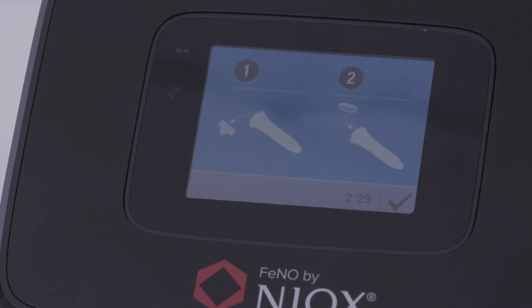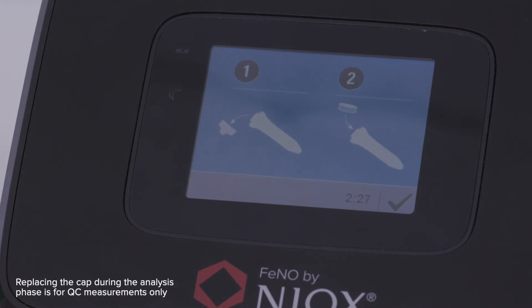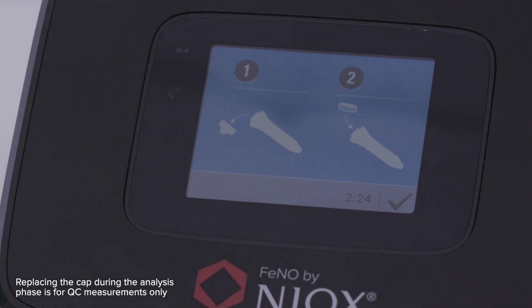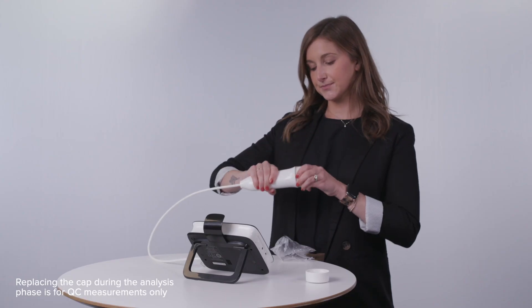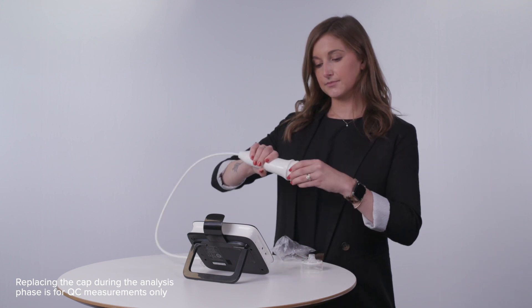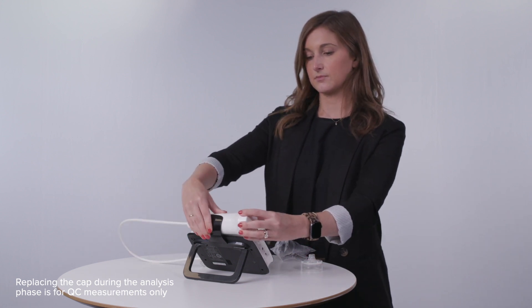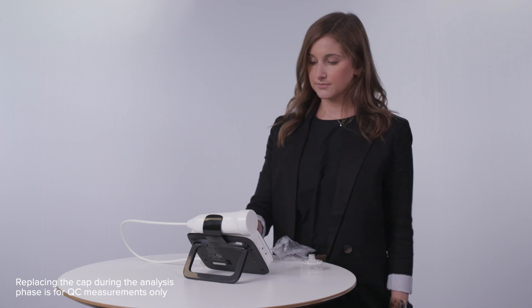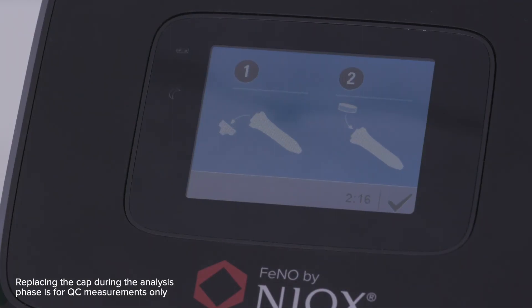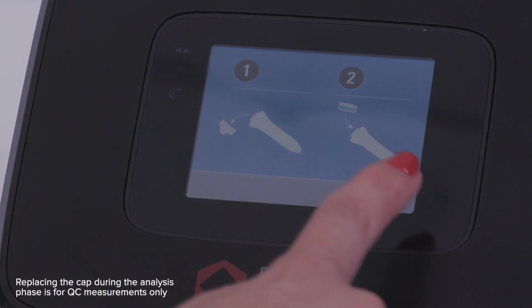Once the maneuver is completed, you'll see a screen that prompts you to remove the filter and fit the cap back on the breathing handle. Next, touch the green check mark to indicate to the device that it has been completed.